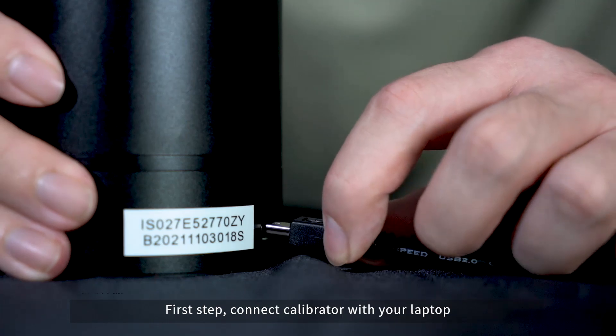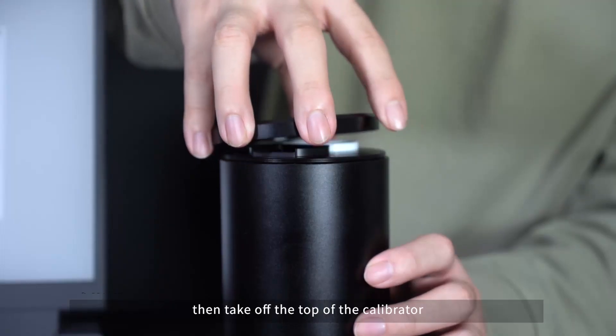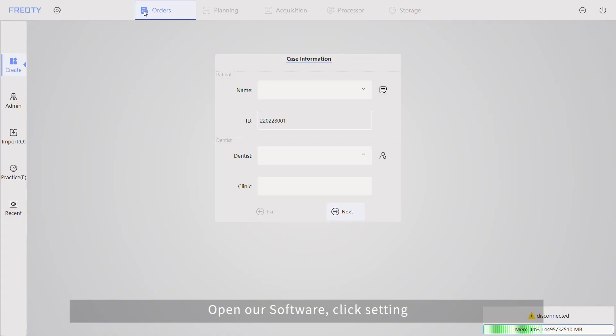First step, connect Calibrator with your laptop, then take off the top of the Calibrator. Open our software.